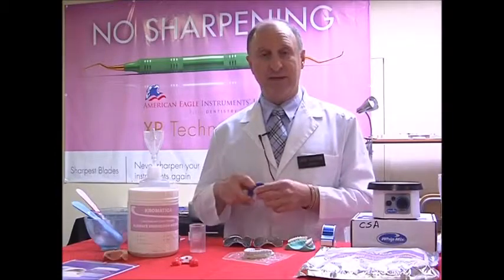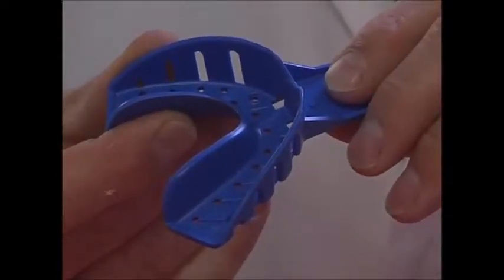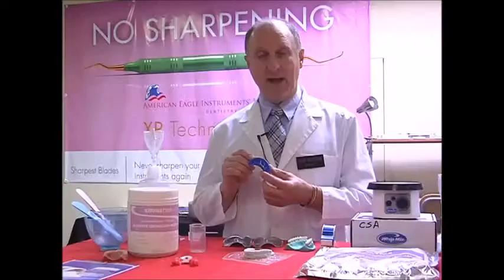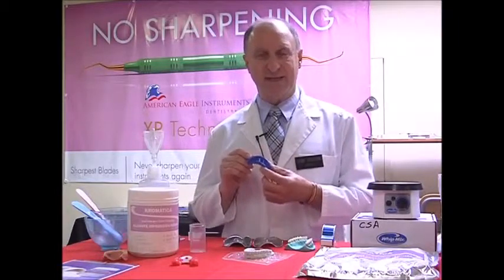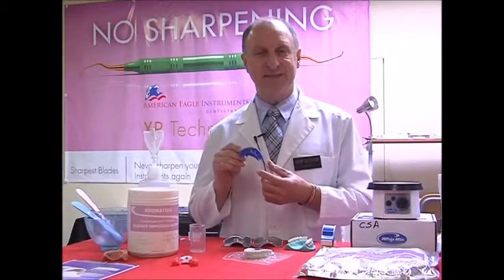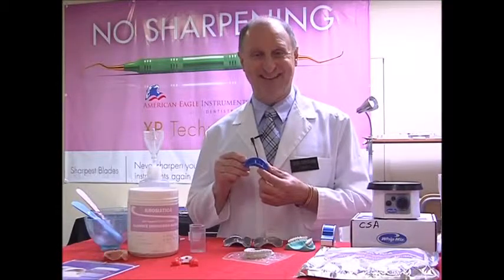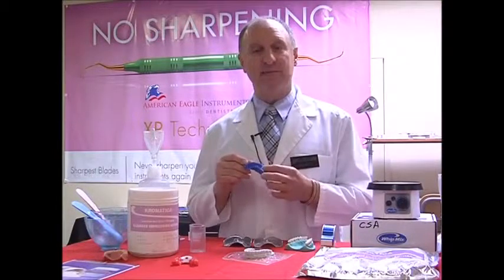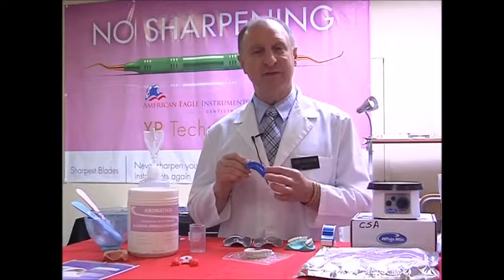Now let's have a quick look at our plastic trays, and these are considered disposable. They come in this case as a half arch, of course, and full impression trays. I go into a lot of dental offices and I see what's happening. They actually put these into a cold soak solution overnight, whereas they're considered disposable. Disposable means you throw it away after each use. The problem being that since it's a plastic, a shiny surface almost, they don't get quite the adhesion that you normally need.